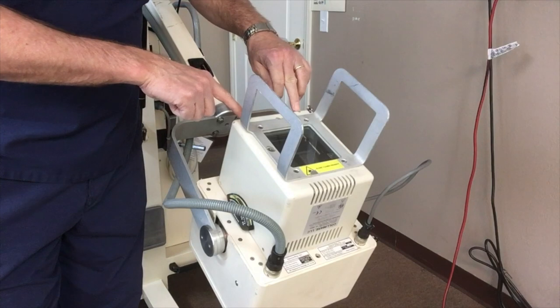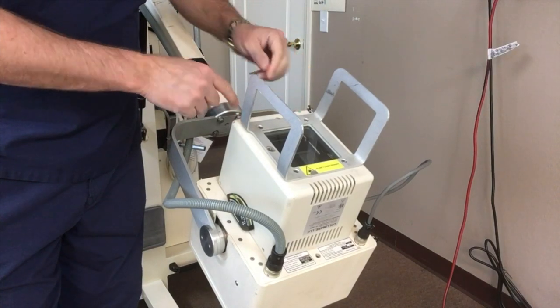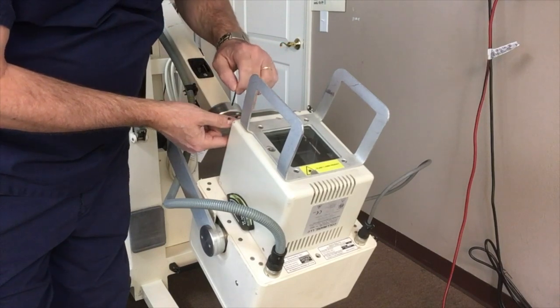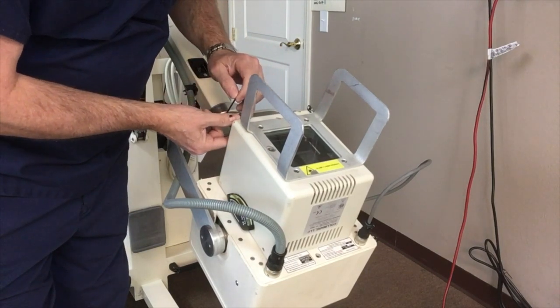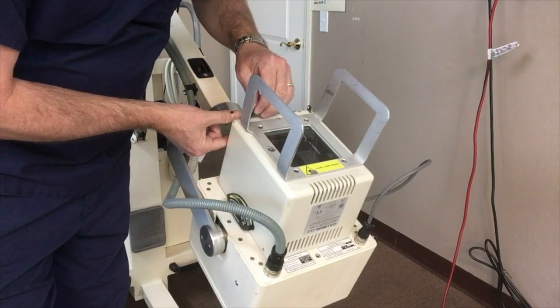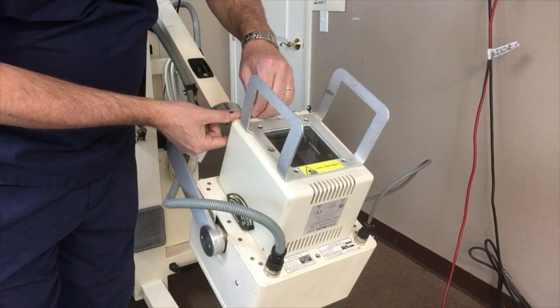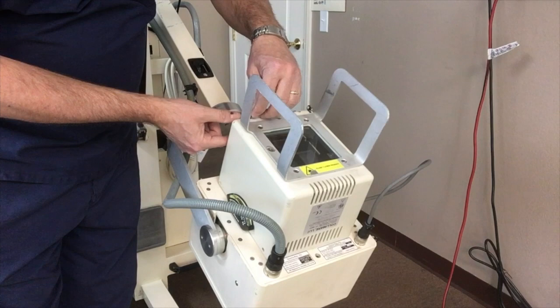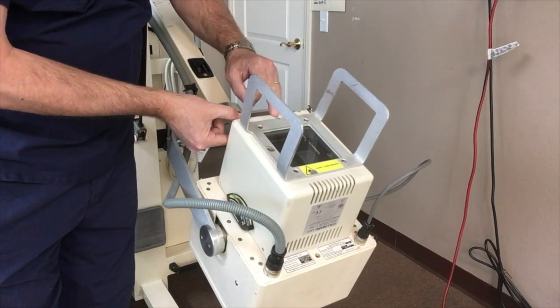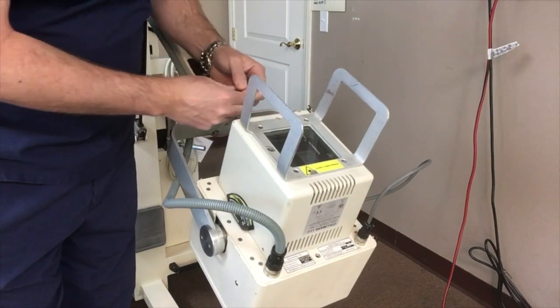The knobs have access holes right here and you need a 3/32nd Allen wrench. You need to shine a bright light down through the hole to locate the screw on the inside. Then insert the Allen wrench and point it back at the button a little, angle it just a little, get it in the hole, loosen the Allen wrench and then you can remove the knob.